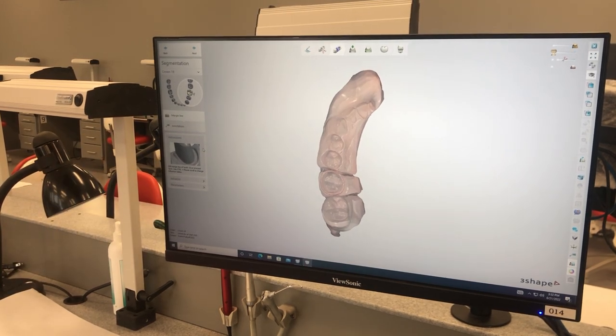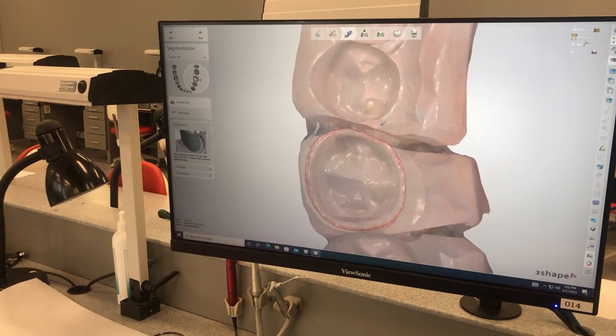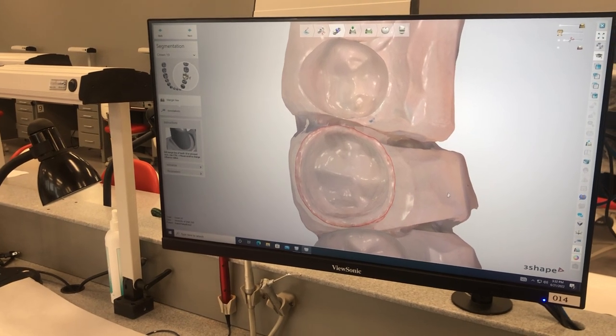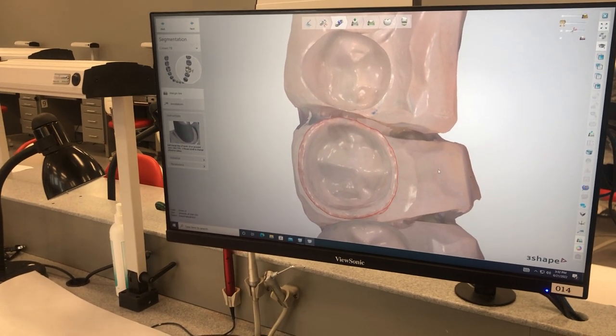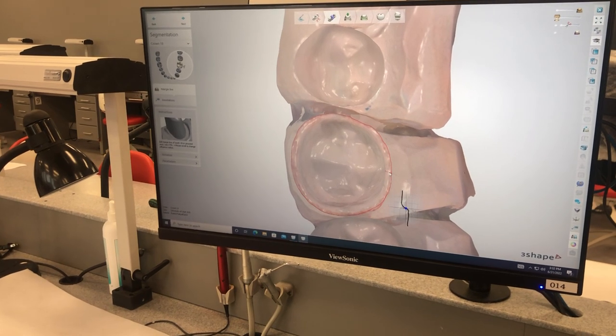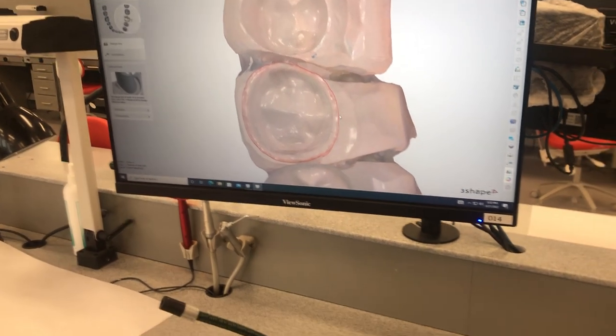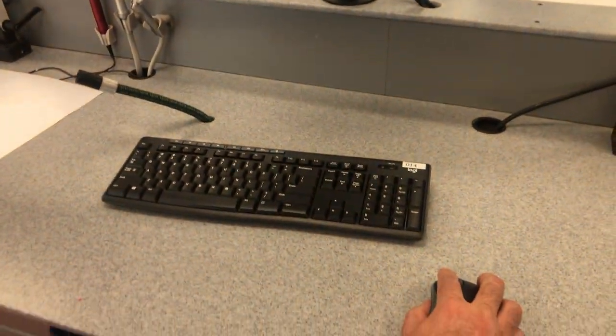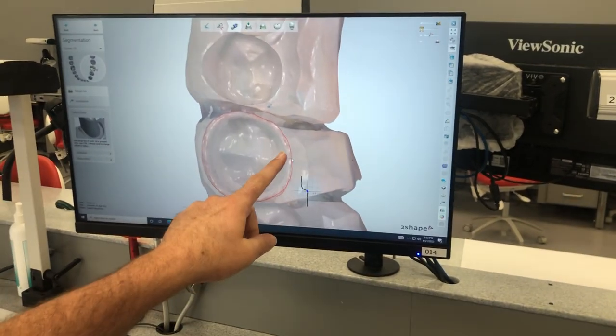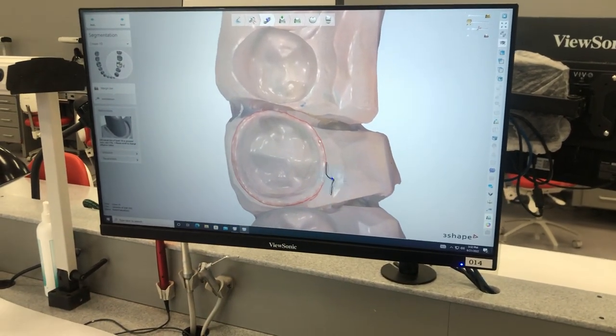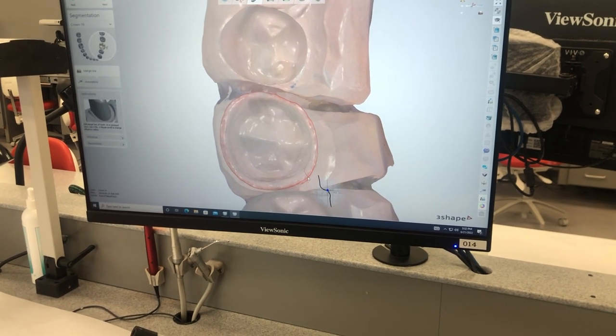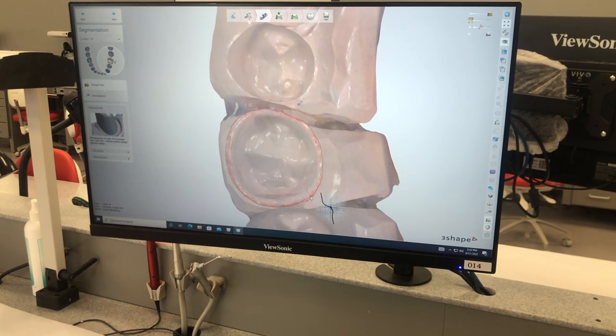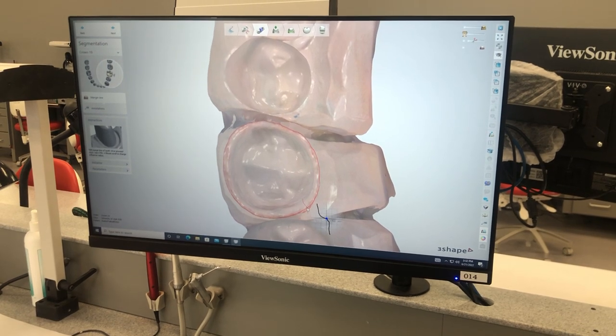One of the things that's kind of hard to get used to is the controls. One of the things I want you to see is this is kind of an update in the software. It's showing you a sectional view of the margin as you're kind of coming across, so it'll show you exactly if you need to put your margin somewhere different. So in this situation there's kind of like a little double margin area, but the margin itself is up there on top. It's not down there, or if it is, it's a little double margin, which it looks like it is.